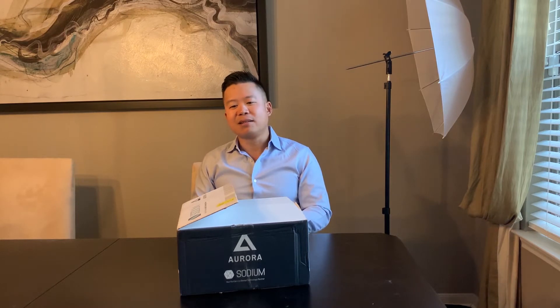Recently, I did have to send off my Gendex GXX-700 sensor because the computer was not recognizing it. They called me and said, 'Hey, would you like to demo or take a look at our new Aurora sensor, which you may be interested in at some point in the future?' I said, 'Sure, why not?' I like trying new things, and I like their service, so here I am.